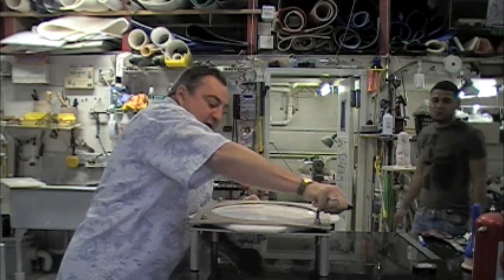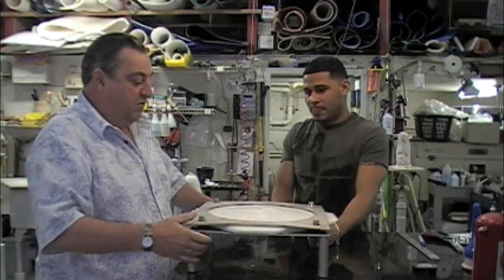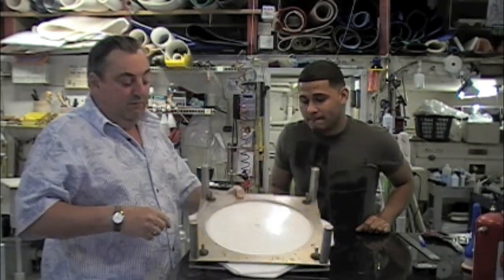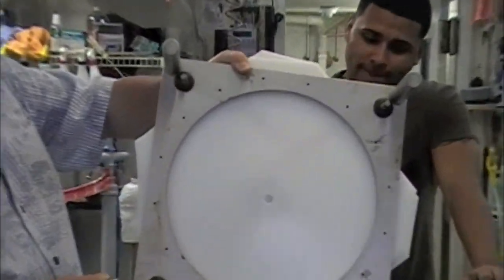Now that's all pinched together — it's just a matter of layup. So that's how it's going to look. We're going to put it in the oven upside down, centered on the ring. That little hole there is going to allow the plastic to vent out between the two parts as it heats up.